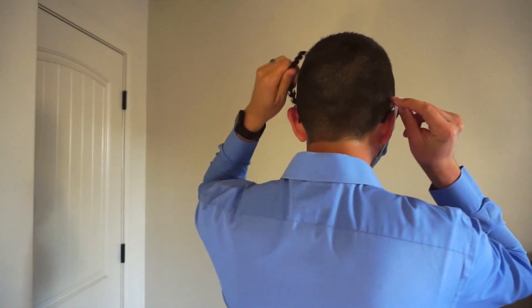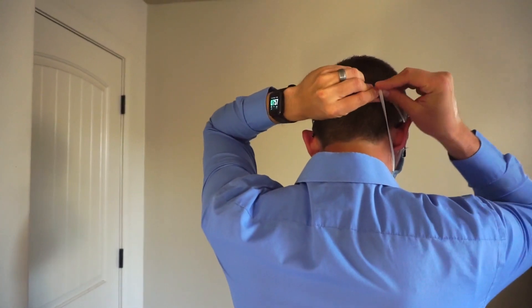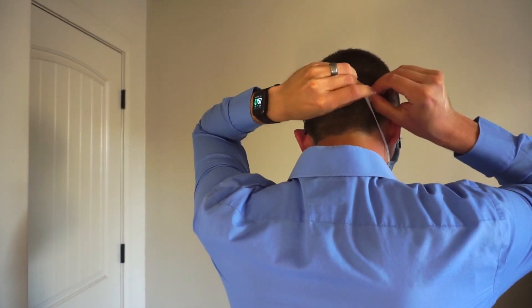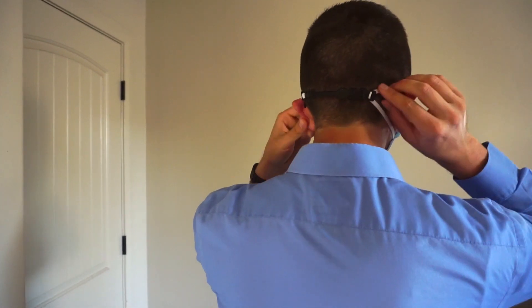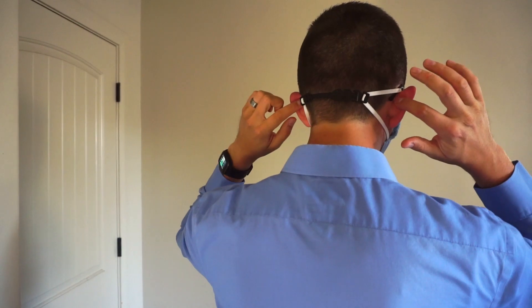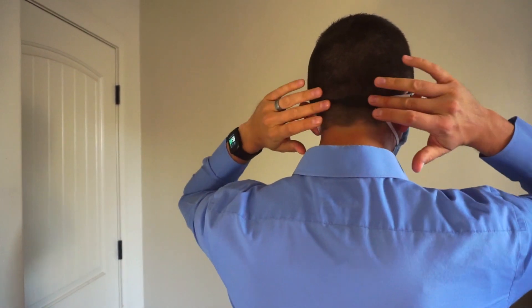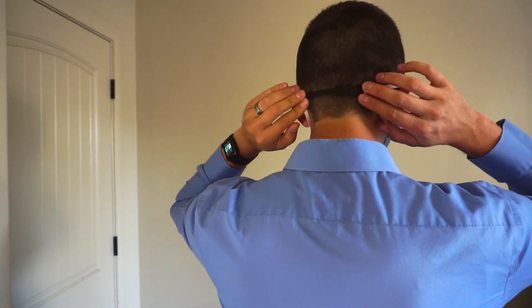I'll turn around so you can see it, and then this is going to connect here. And then you don't have anything pulling on the back of your ears; it's instead pulling on this band here.